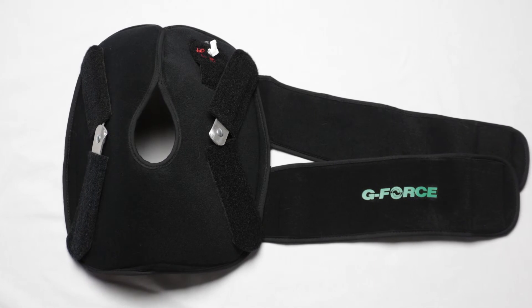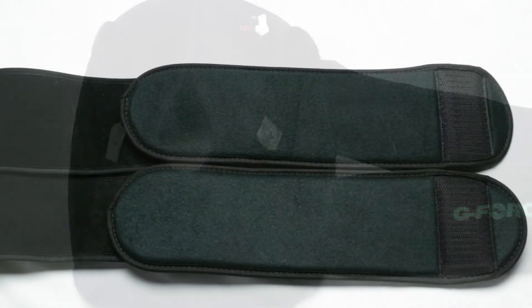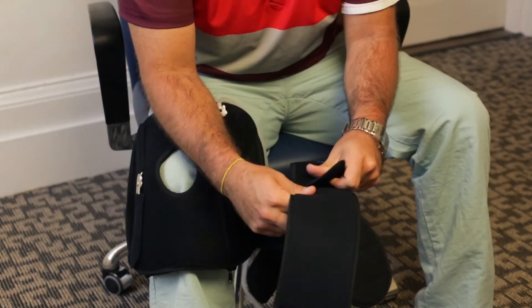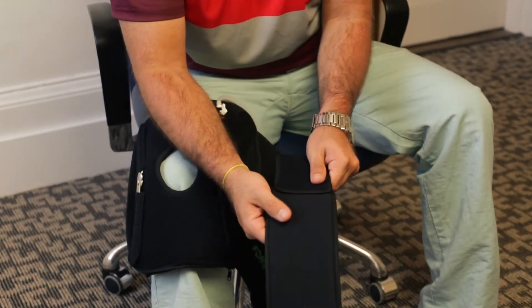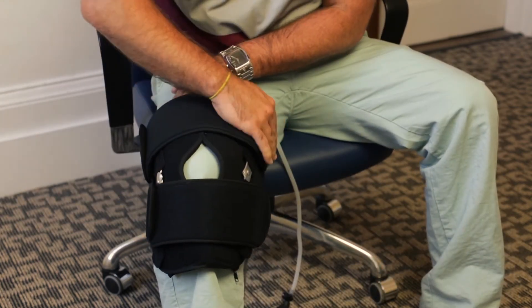For other patients who need additional support, the Knee Cold Compressor also includes two stabilization hinges and strap extenders. The hinges are easy to apply — simply attach one hinge to each side of the brace and tighten the brace with the strap extenders.